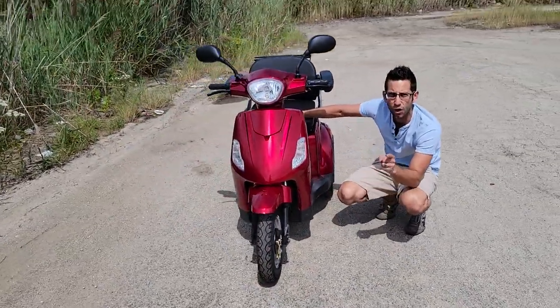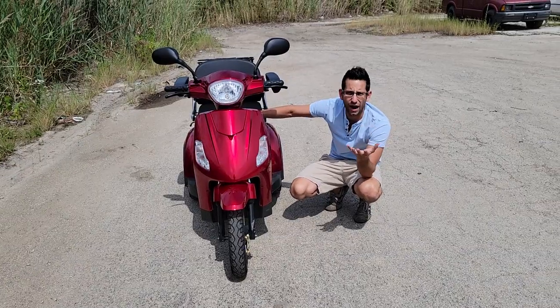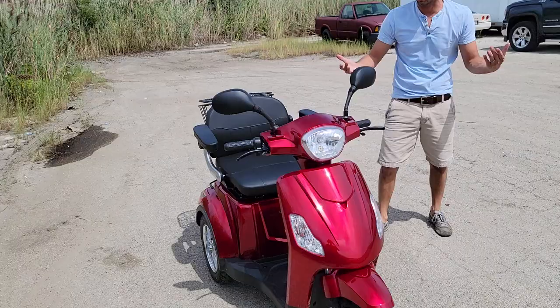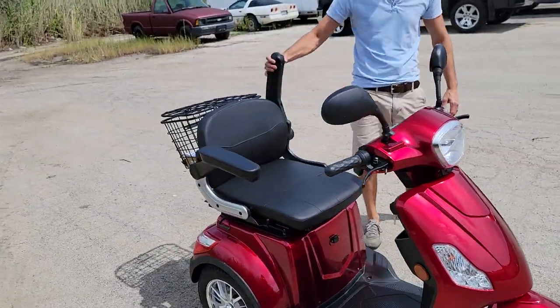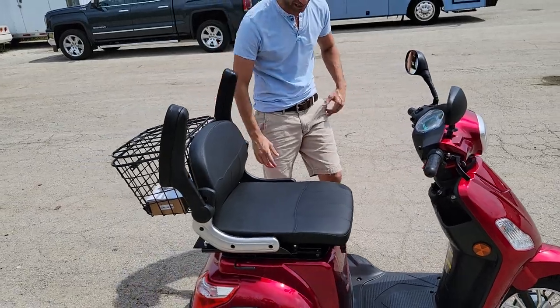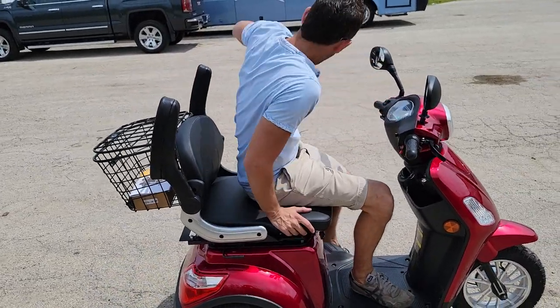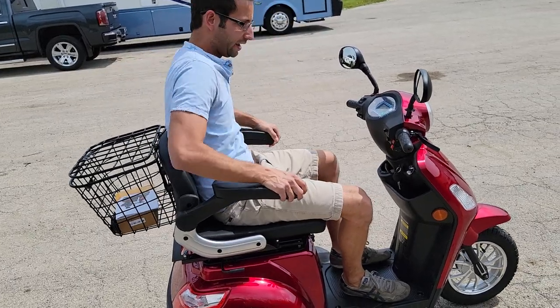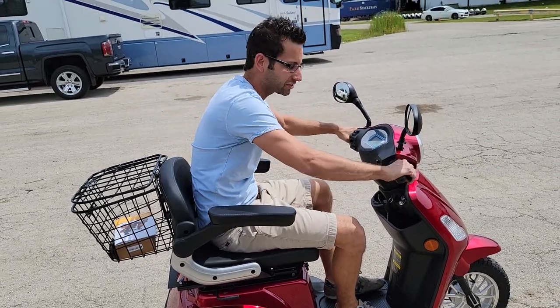It's 48 volts, so it's going to move your old body around with ease. I don't care if you're 100 pounds or 387 pounds — this one's for you. If everything just hangs out when you're sitting there, all you've got to do is pull up the armrests, tuck everything back down, and there you have it.